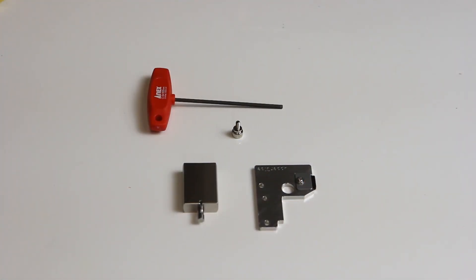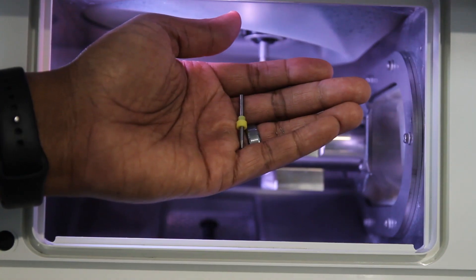To complete this step, you will need the rotary axis correction jig, ATC magazine correction jig and screw, hexagonal screwdriver, cloth for care, detection pin, and a dry cloth.